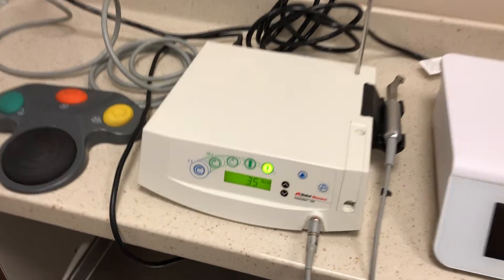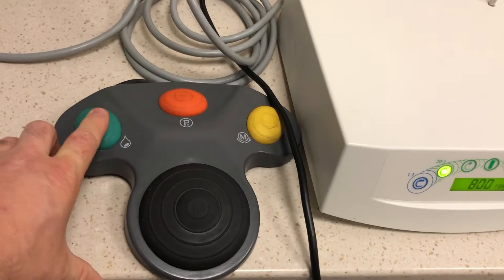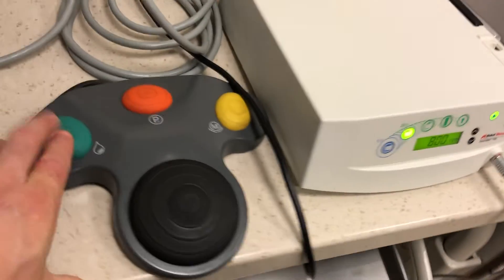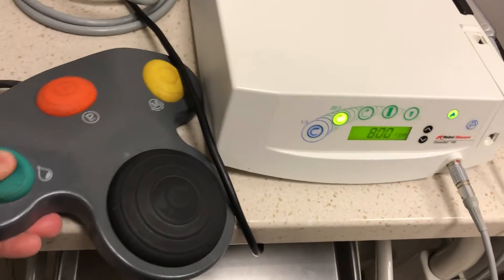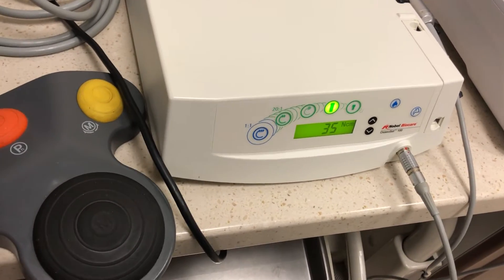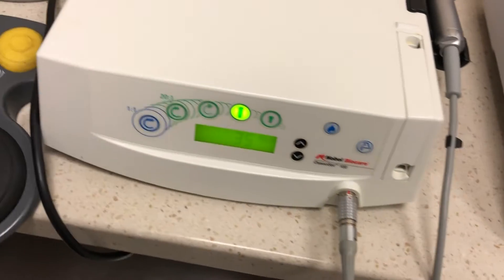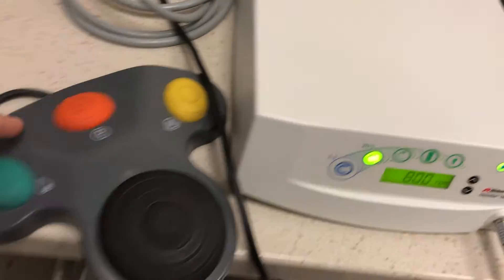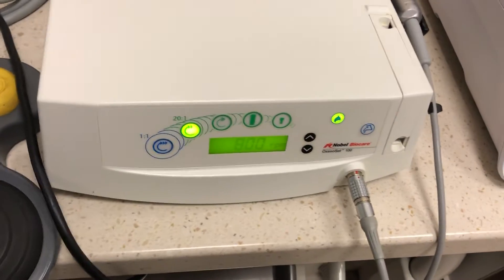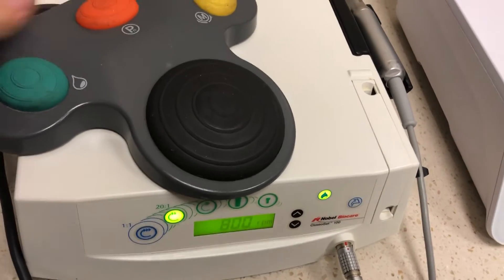That is the entire thing — very simple. Let's try it out. I'll go see if you press that. Is it plugged in? It is plugged in. Why is it not working? Okay, that works. So there's a little bit of flakiness with this thing. That's reverse. That switches modes. And this is supposed to toggle water on and off — doesn't always work. You can tell it's 15 years old. But it depends on how I press it; it does usually work.